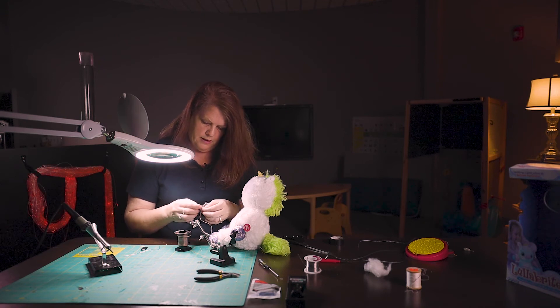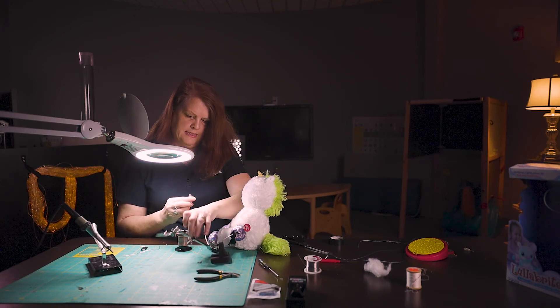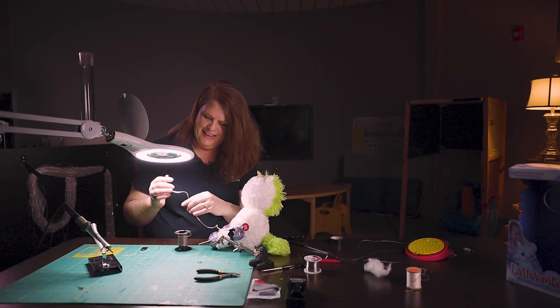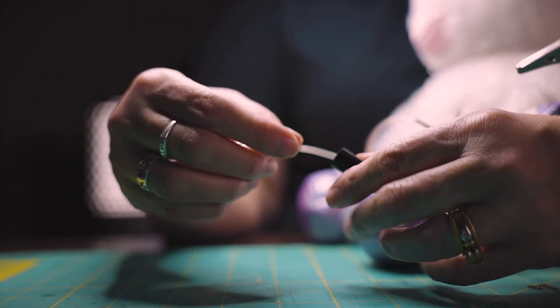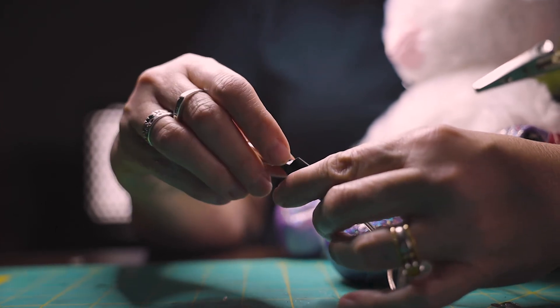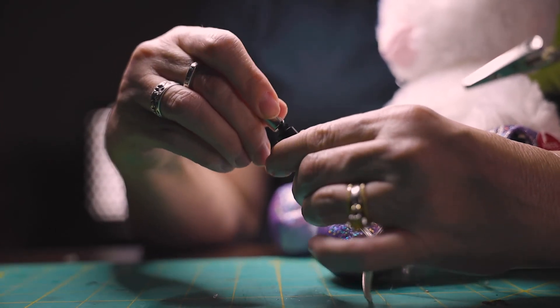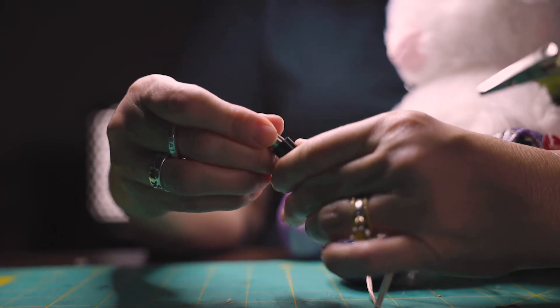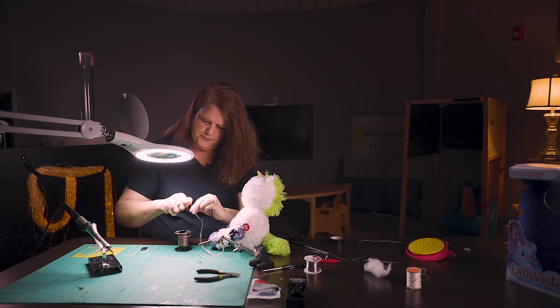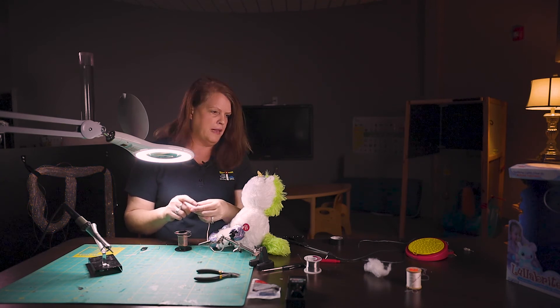That should work. Remember we have the casing down here at the bottom already — we had put that on because we were thinking ahead — and we're going to pull that up and gently help guide the post in. Then you can hold the silver piece still and screw the casing in. And there you have your jack where you're going to plug in your switch.